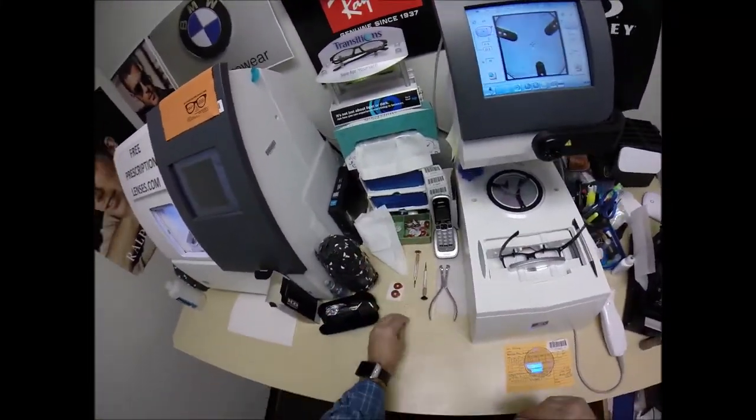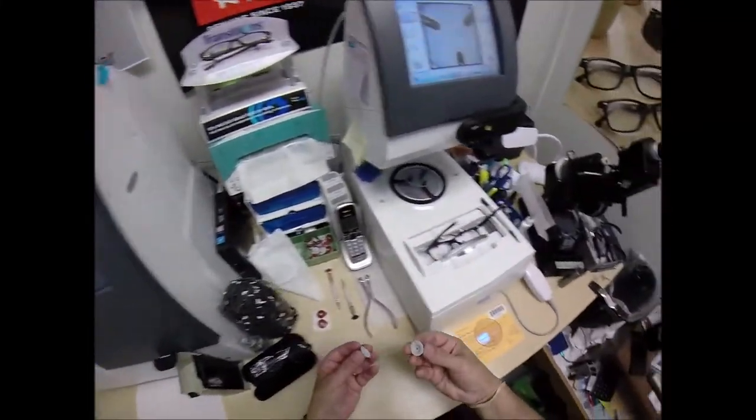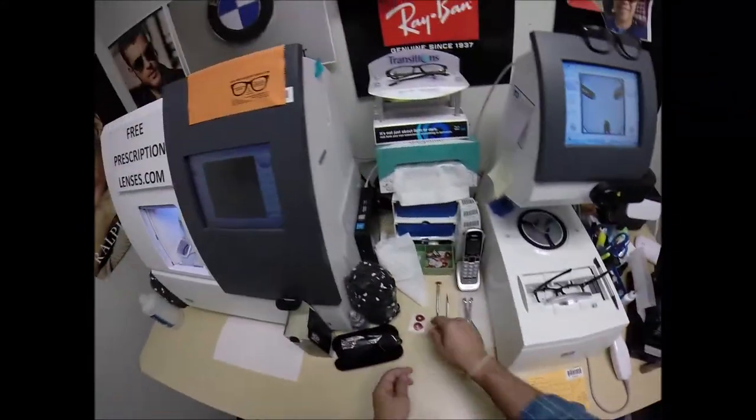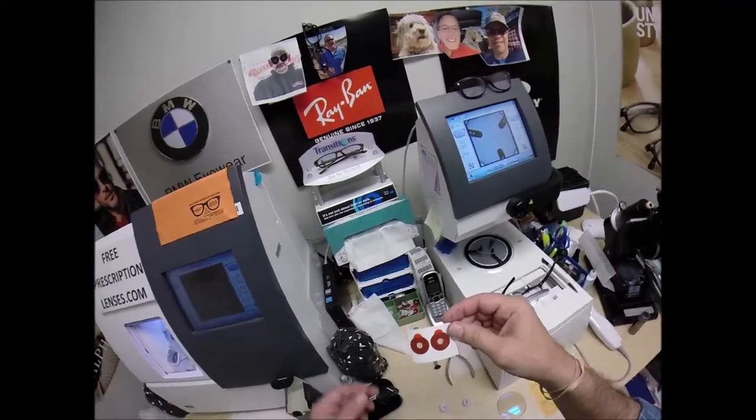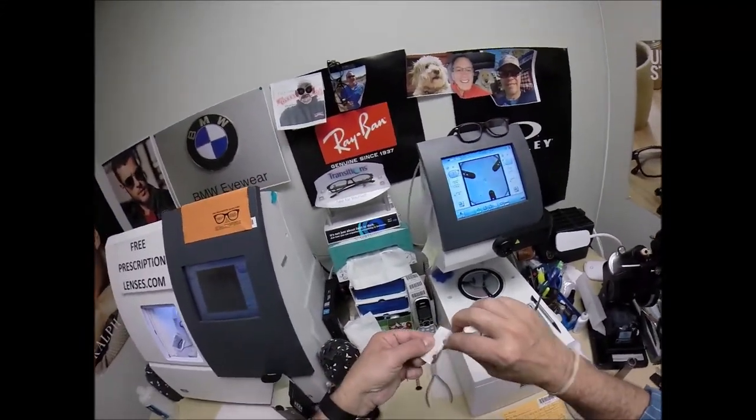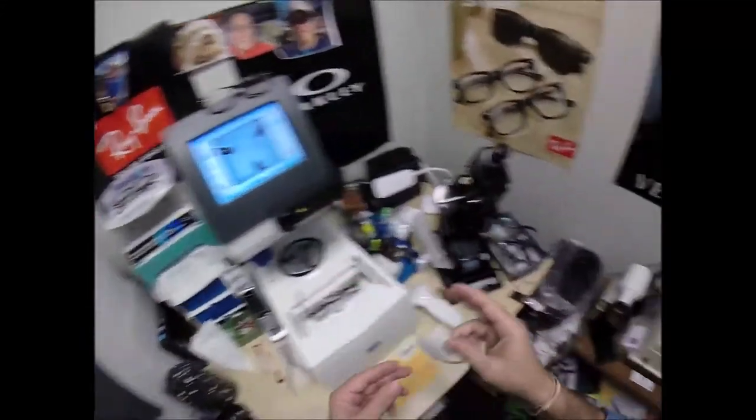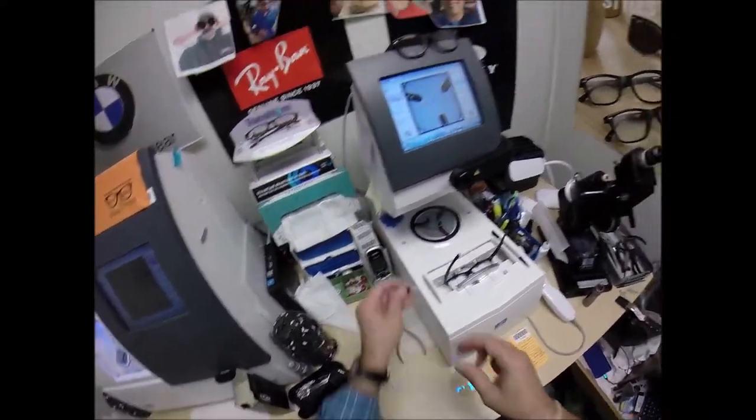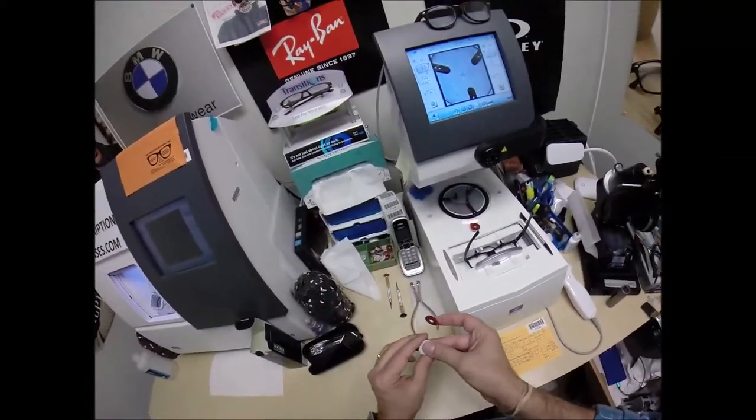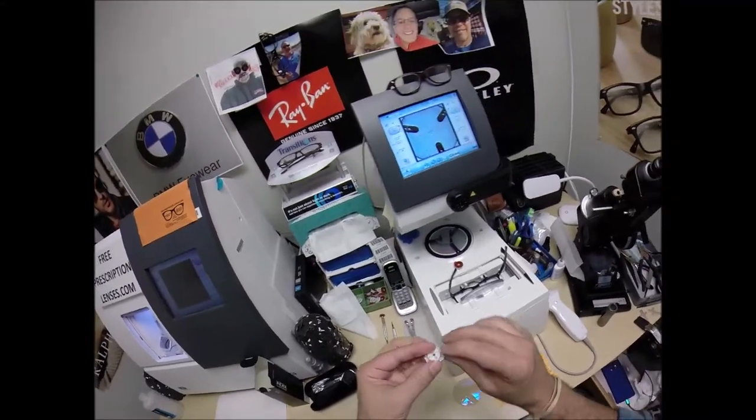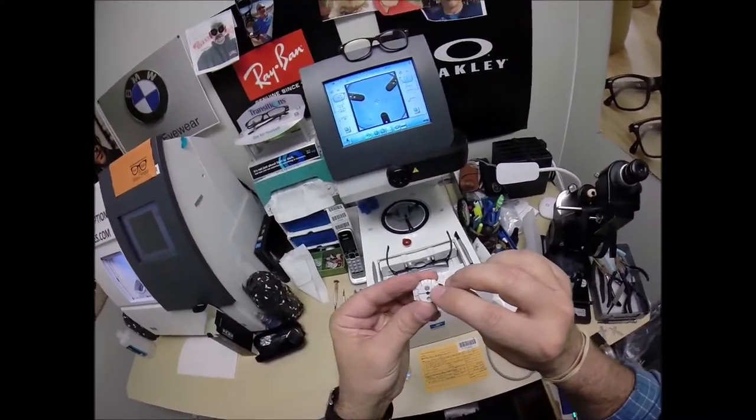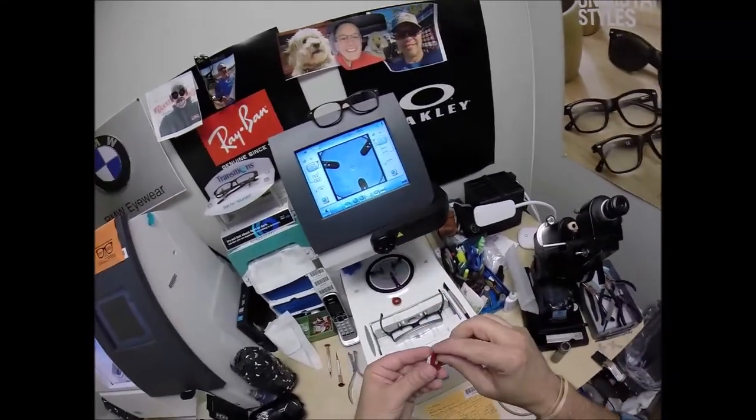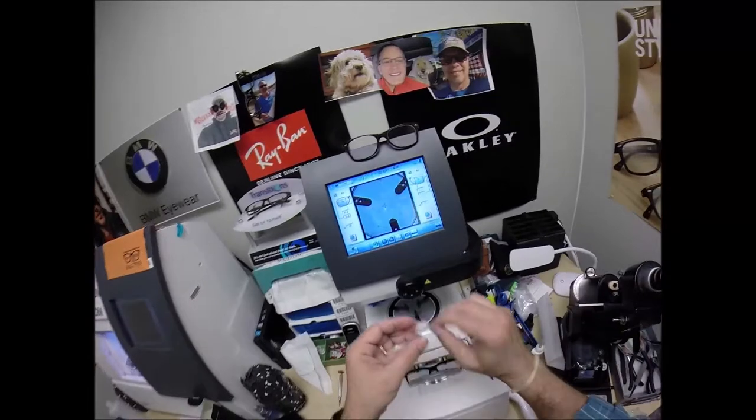So this is a block, or as I like to call it, Jenny from the block. I need to attach this to your lens while it is cutting. That's what's going to hold it in place in the lathe. So I need two double-sided adhesive stickers, of which I've got two here. The black side is the sticky side. I'm going to line up this first block. Put it on the platform. Do the same thing now for the second one. Now, on the back is a silver button. That is a magnet. It's going to do its job twice. The first time, it's going to attach itself to another magnet there in the arm. Pull the paper way to make the black side sticky.